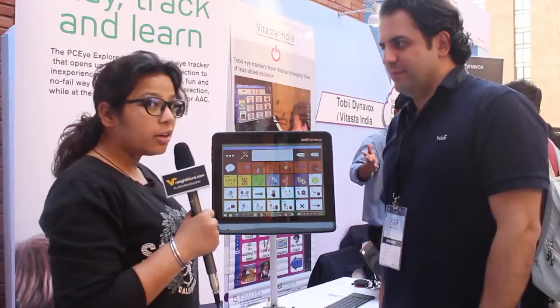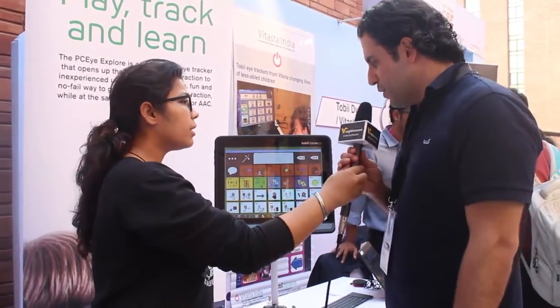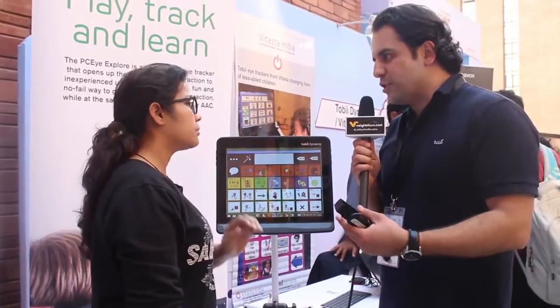We are with Kaveh from Tobii Dynavox, and you have a very good software which we were also going through in the morning. So tell us something about this. Yes, so we are Tobii Dynavox. We are the world leader when it comes to eye interaction and eye control technology.